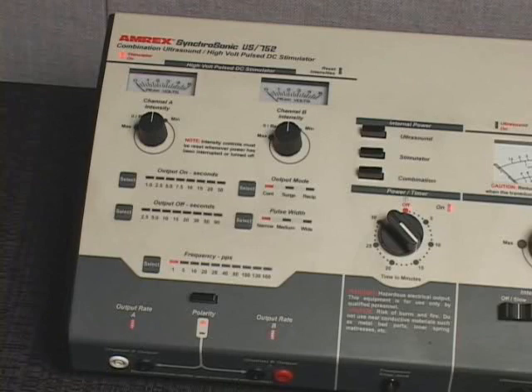The factory default treatment settings are output mode continuous, pulse width narrow, frequency one pulse per second, and white reference jack polarity negative.